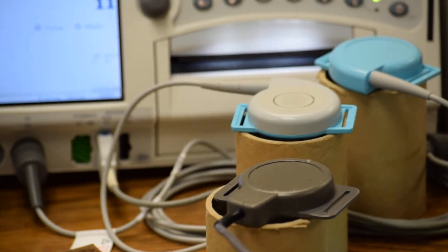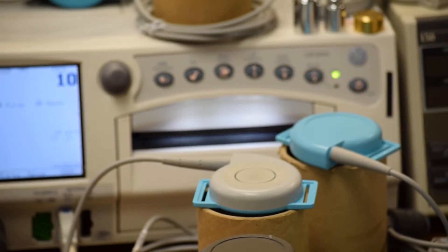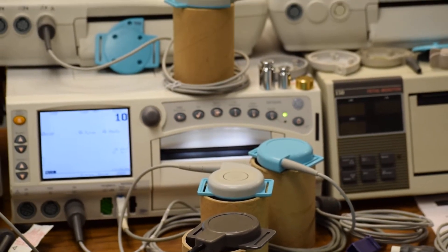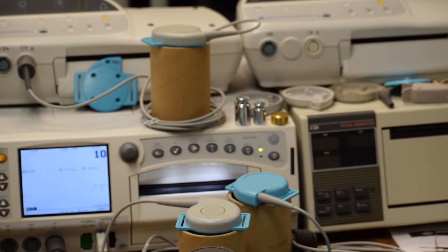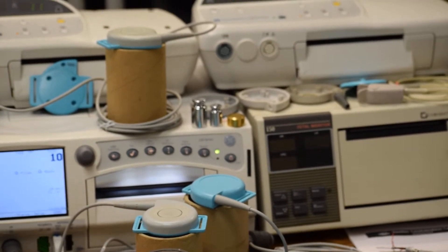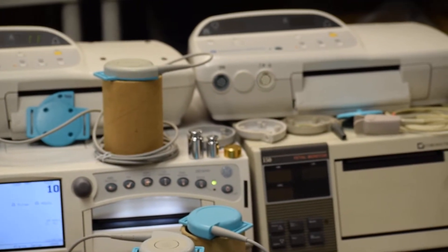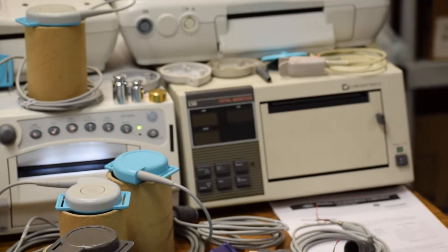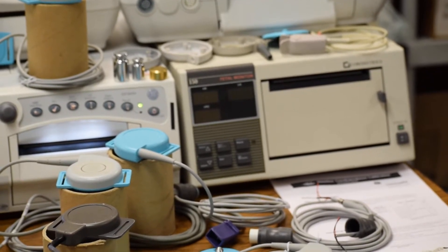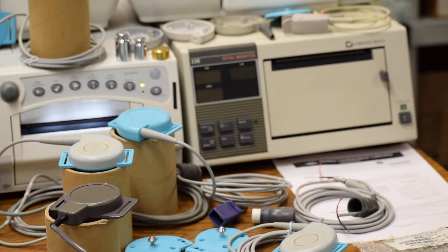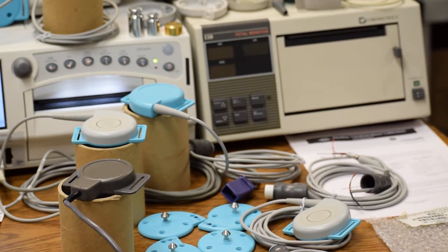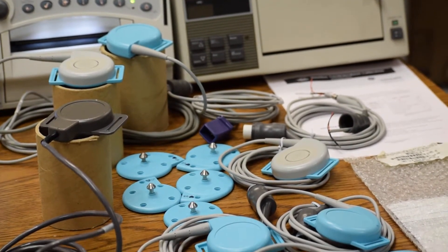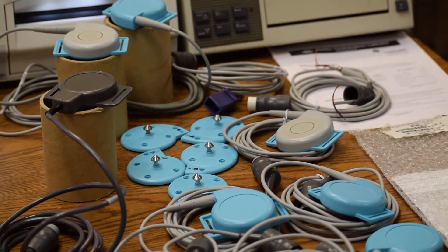This crystal bonding process is the best technology available. At Avron, we offer lifetime warranty on the crystal bonding. Initially it was developed for HP ultrasound transducer model M1356A, which had a chronic problem of crystal rattling. The initial target was five years bonding strength, but after tracking and evaluating even after six years, the failure rate was only 0.2%.